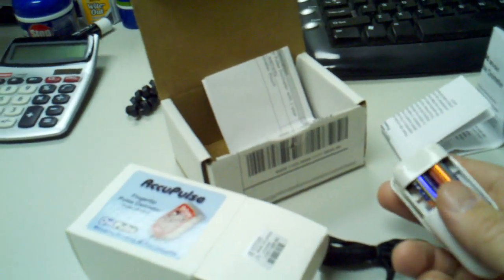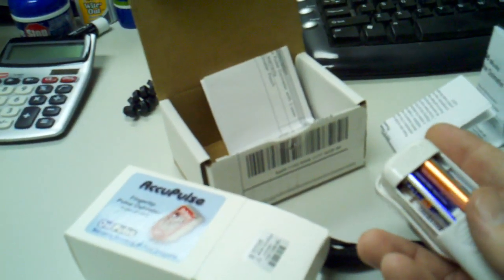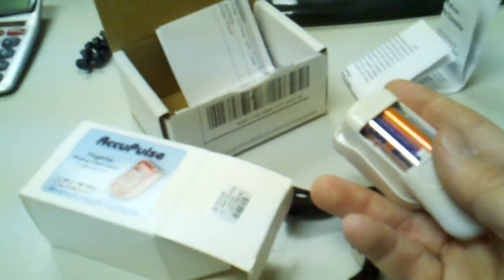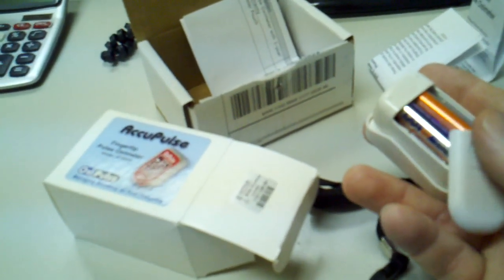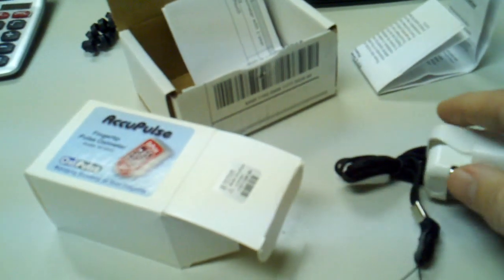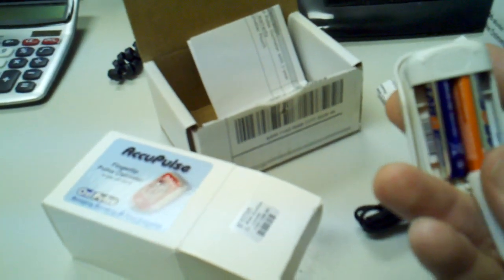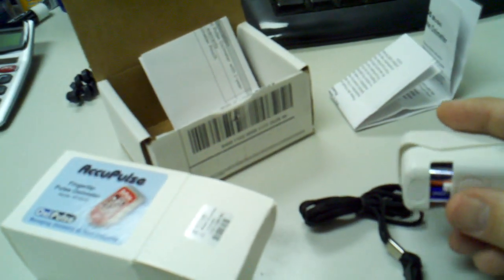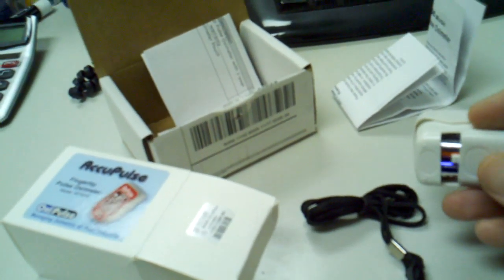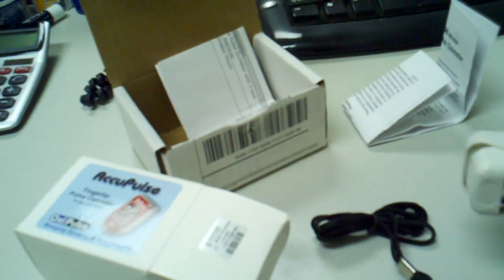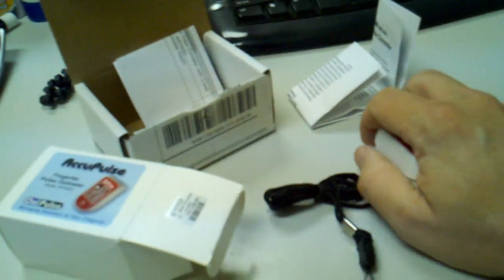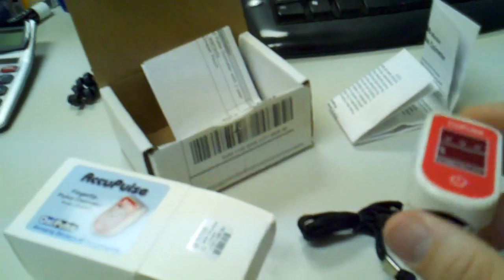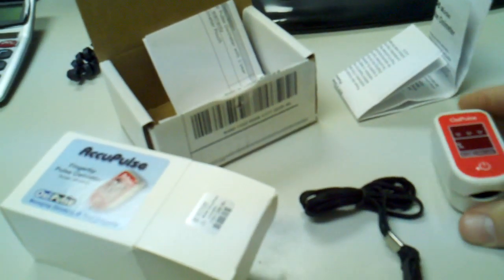This is the device that you use to test. How accurate is it? It's pretty accurate. If you really want to be accurate, you can spend well over $1,000 for these units. It does come with two batteries. This is probably plus or minus maybe one or two percent, so that might be a concern. But if you just want a generic reading, this is an excellent device to get.